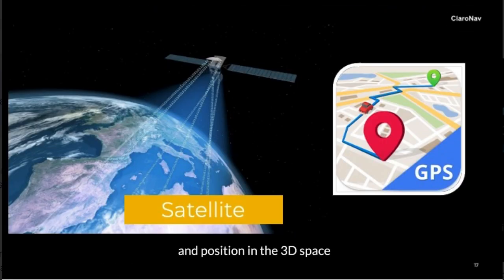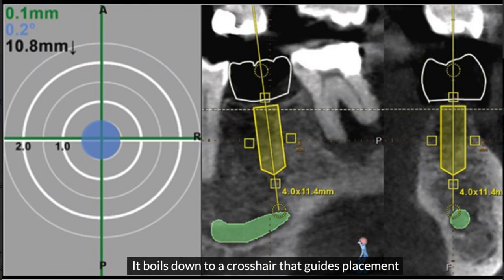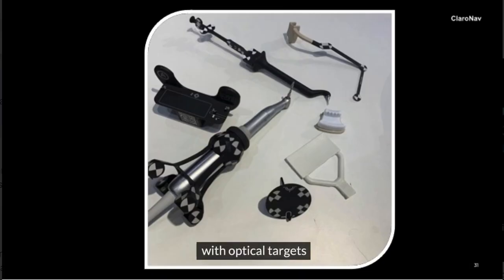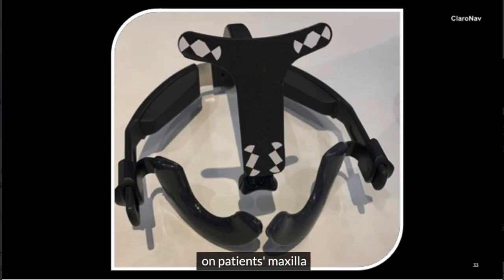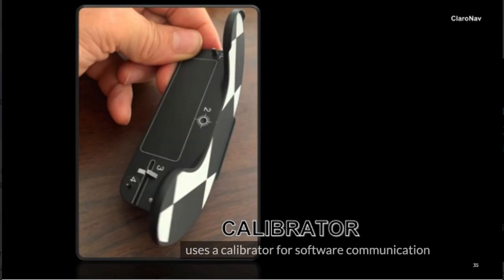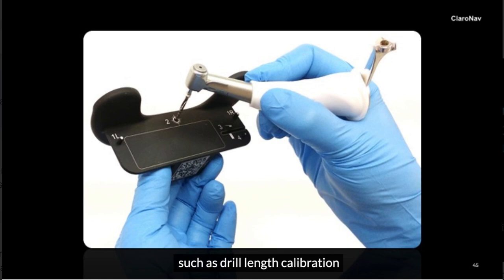It boils down to a crosshair that guides placement, with optical targets on surgical tools, on the patient's maxilla, and on the patient's mandible. It uses a calibrator for software communication, such as drill length calibration.